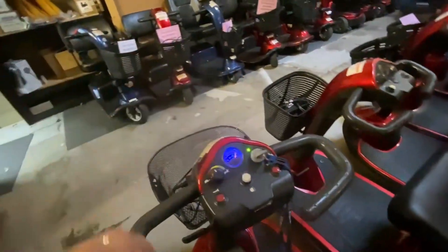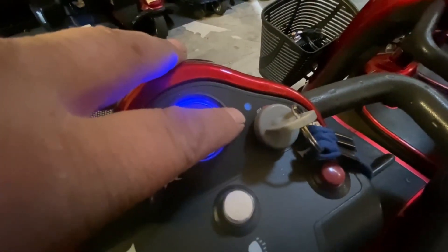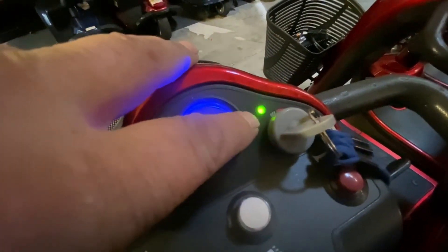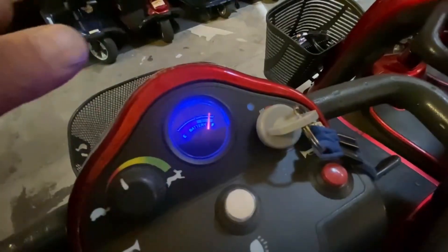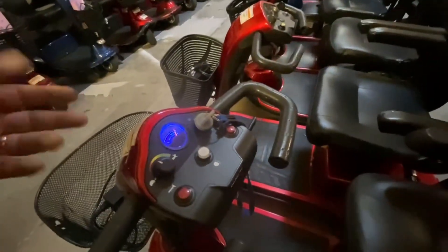So that's your Golden product. I'm just checking this is in free wheel. There you go — you can see your flash code there. Five beeps means brakes disengaged. There's also an audible beep on this scooter as well. That's how the scooter will tell you what's going on.